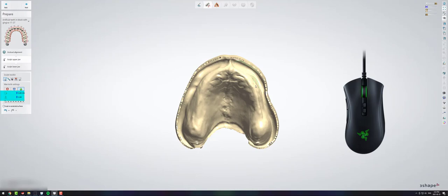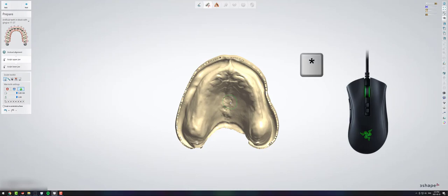I have extra buttons on my mouse, so I program them for smoothing and adding. Those are the two most common buttons that I use when I'm waxing and it just makes it a little bit quicker for me to switch between smoothing and adding. You can also use keyboard shortcuts on your number pad. You can use the star, the minus, and the plus.